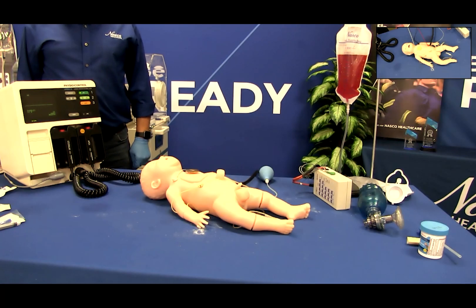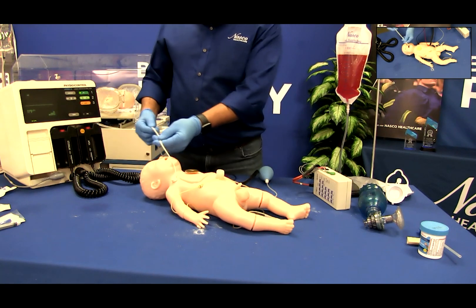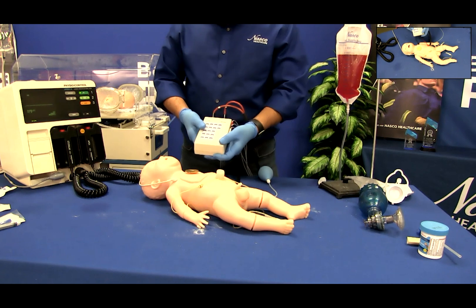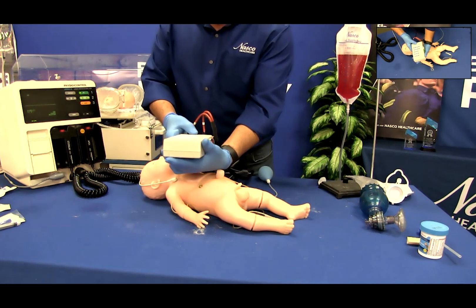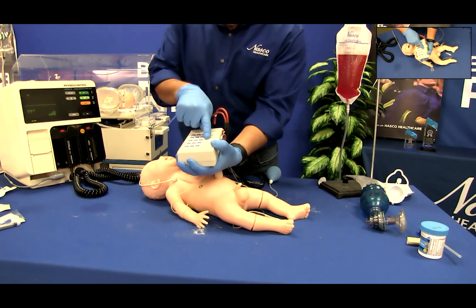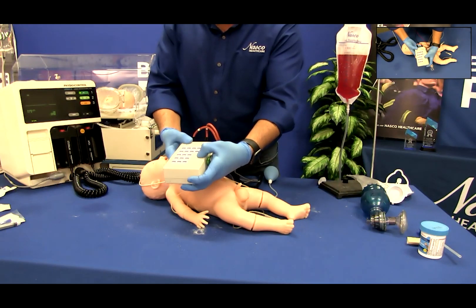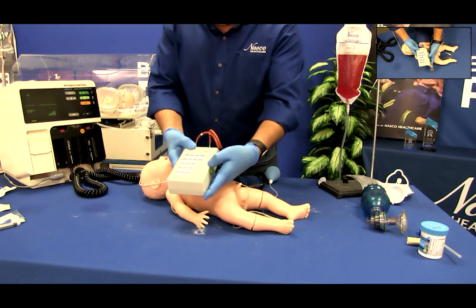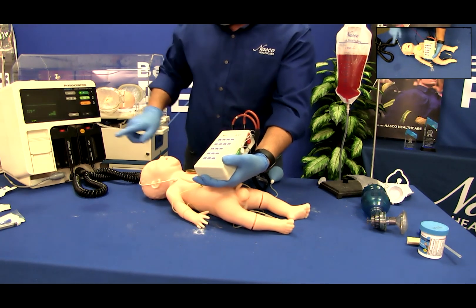Practicing CPR and defibrillation. Once you have set up and connected Charlie to the interactive ECG simulator, turn on the interactive ECG simulator by pressing the on-off button. When turning on the ECG simulator, the default selections are the adult age group and normal sinus rhythm. Press the age group button to select pediatric rhythms. Next, press any of the rhythm buttons to select the rhythm for the scenario you are running. The rhythm will be displayed on your AED monitor.